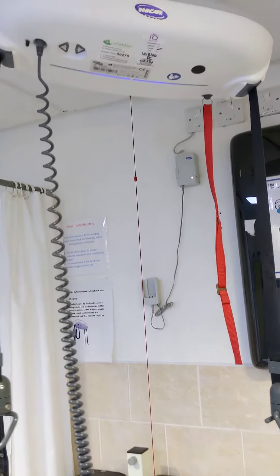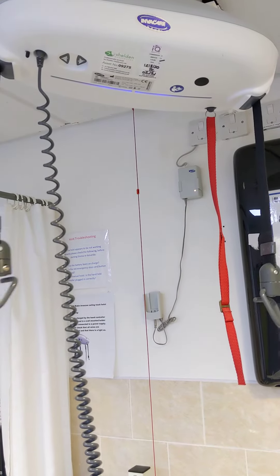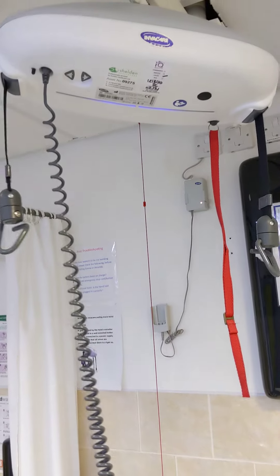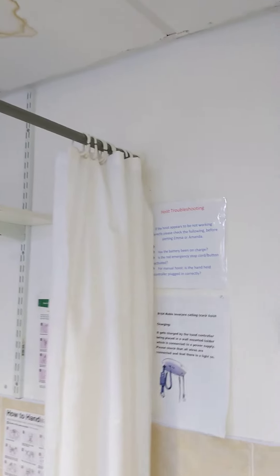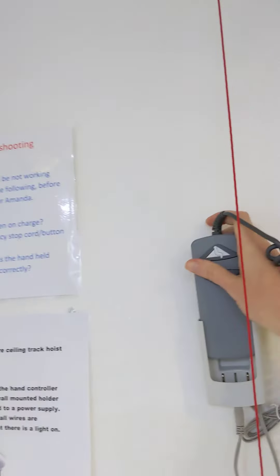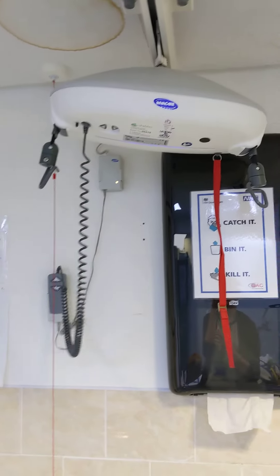Just a little bit of advice: when you store it back, you always want to store it with these up, so it's not going to hurt anyone. Store it back and make sure it goes back in so it can start charging.